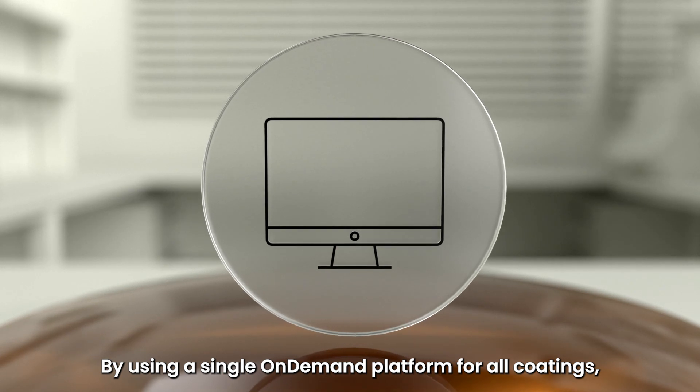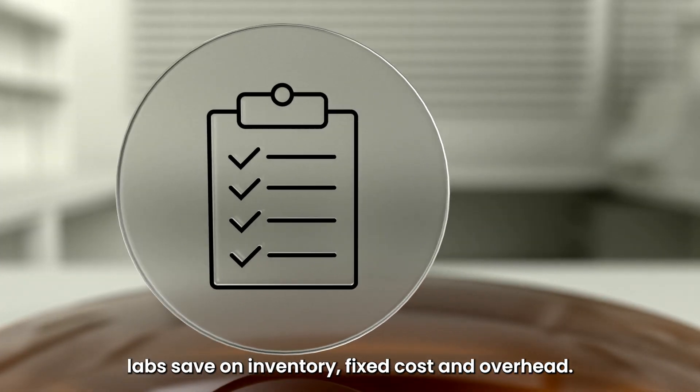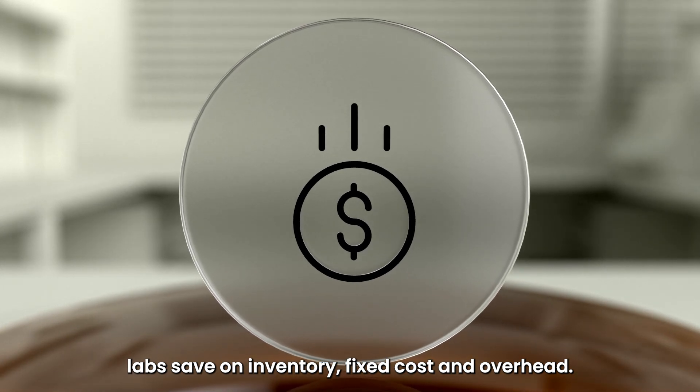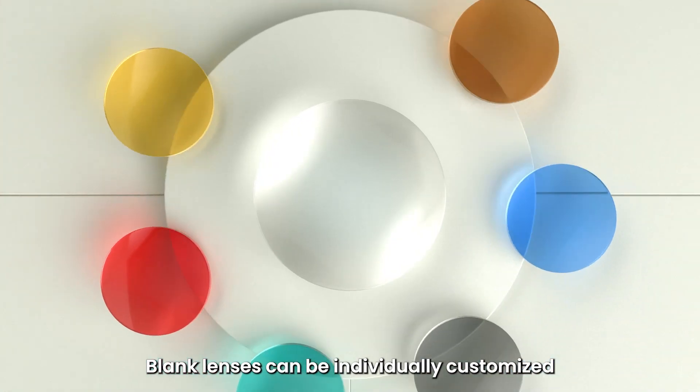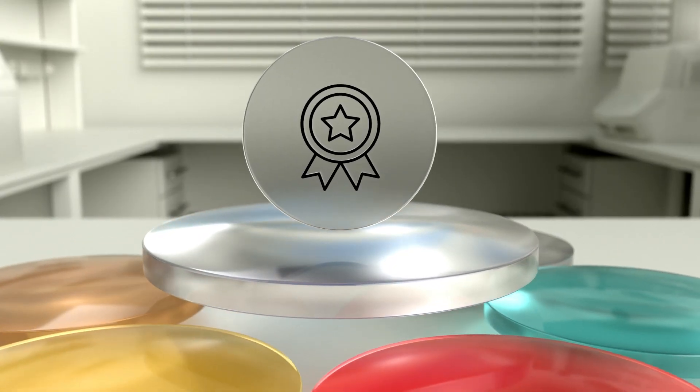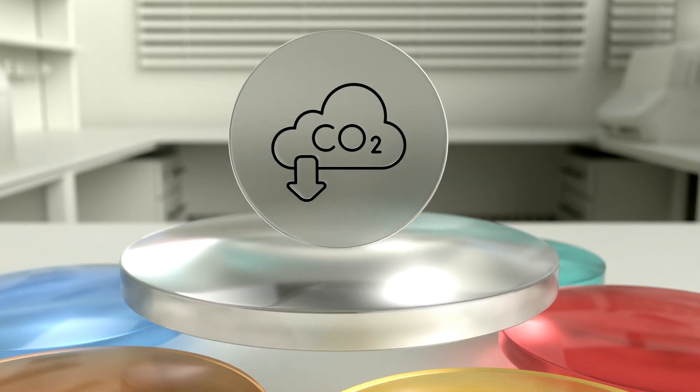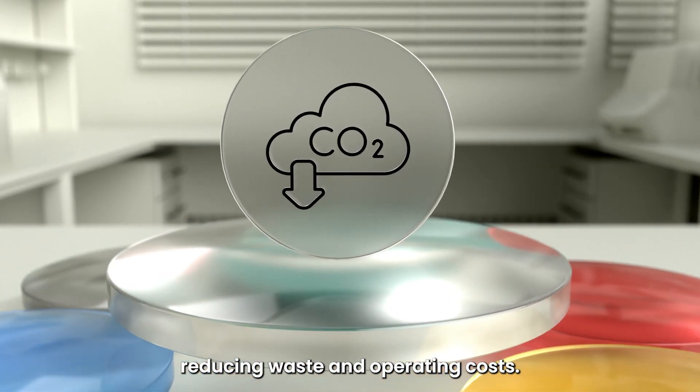By using a single on-demand platform for all coatings, labs save on inventory, fixed costs, and overhead. Blank lenses can be individually customized with any desired coating at consistent quality. And the entire solution is both scalable and sustainable, reducing waste and operating costs.